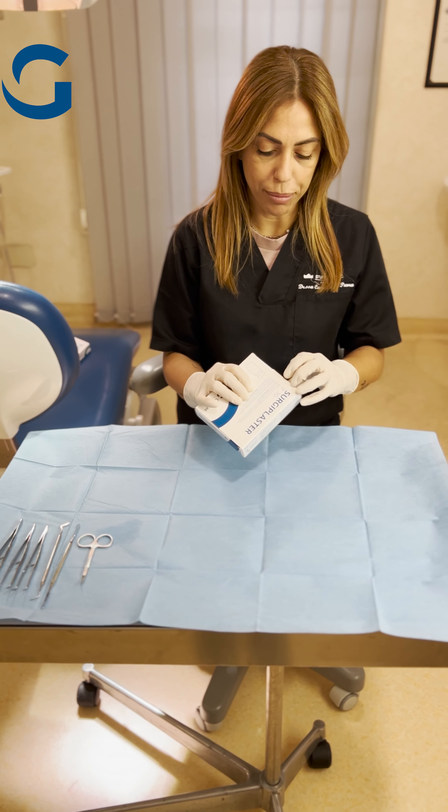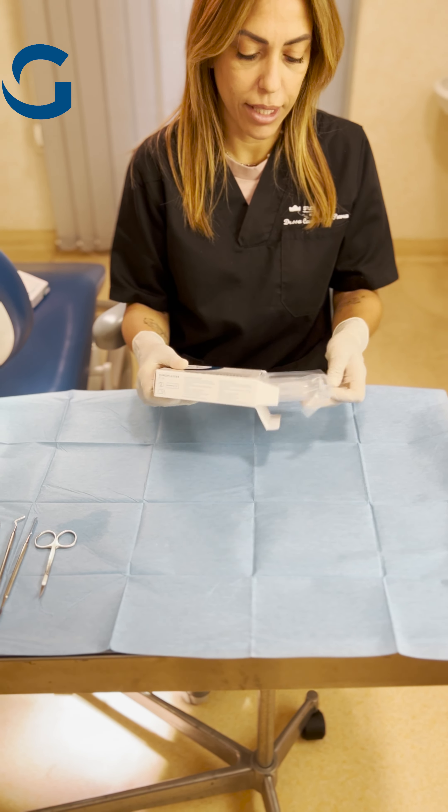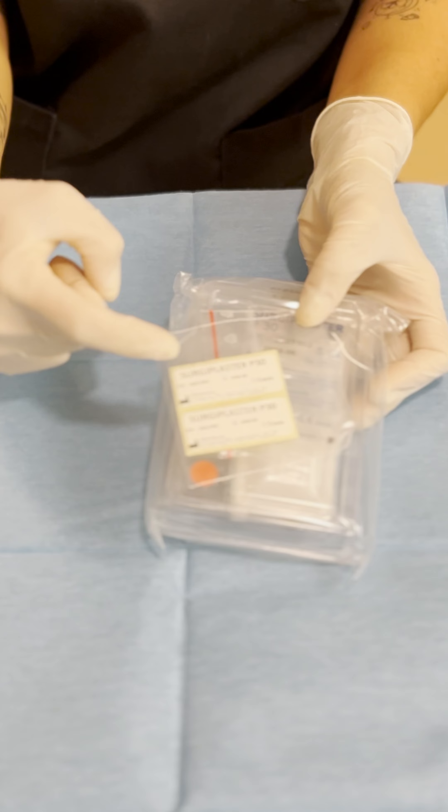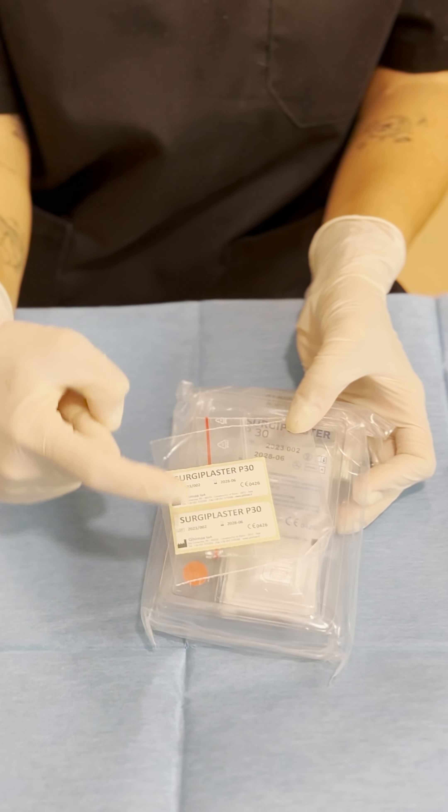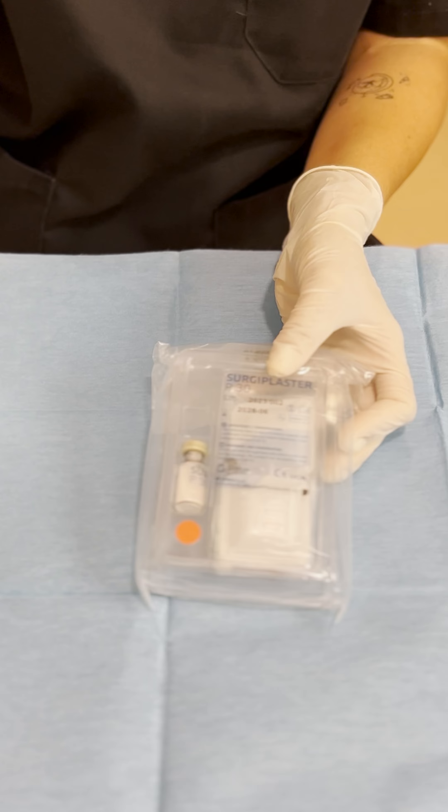So we open it up. This is how it's presented. We have the stickers over here. One is to give to the patient if you want and this is for the chart so you can remember the lot and everything else.